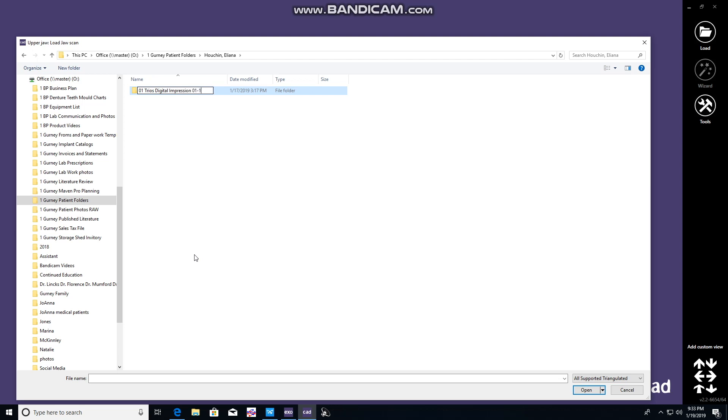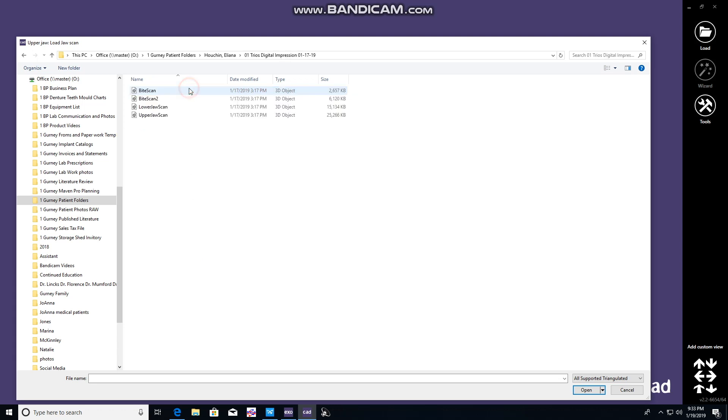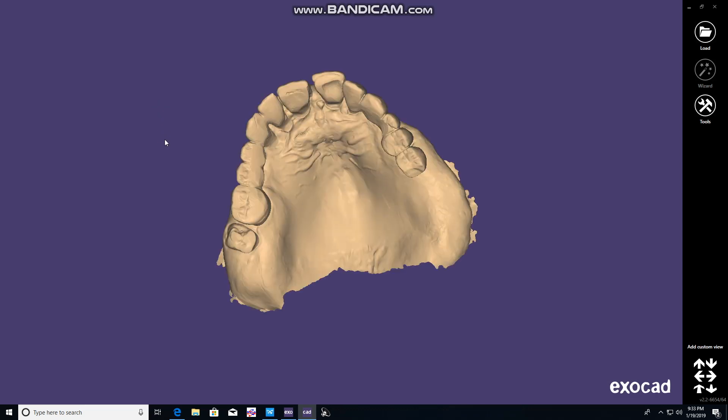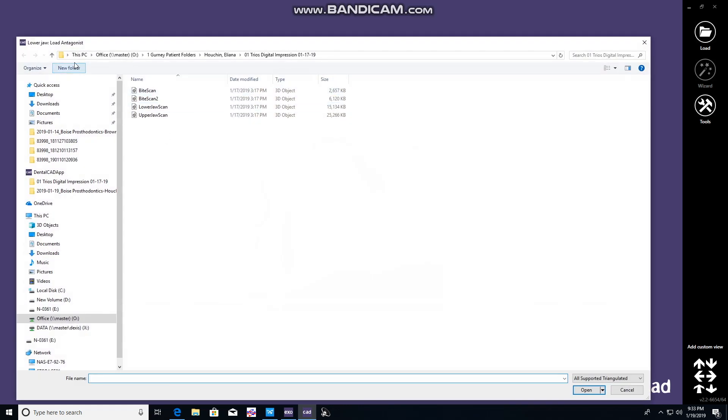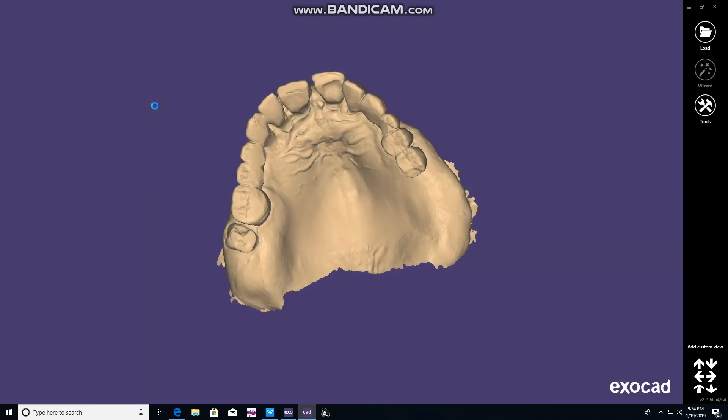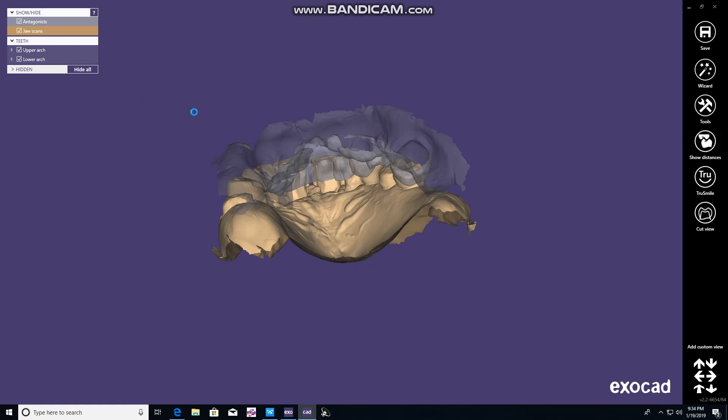Once that is ready, open that folder and follow the prompts. The upper left corner says upper jaw scan, then lower jaw scan. So we add those.